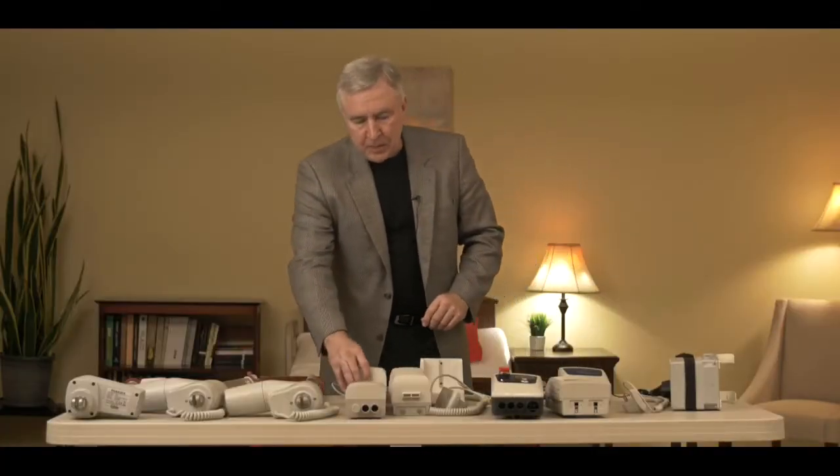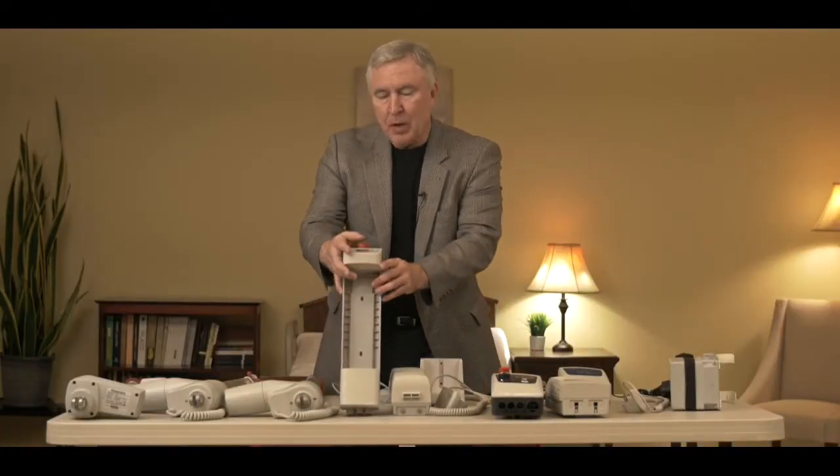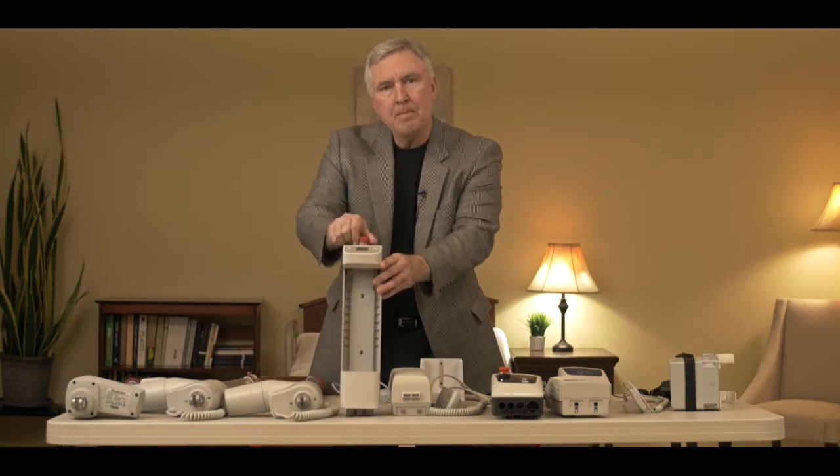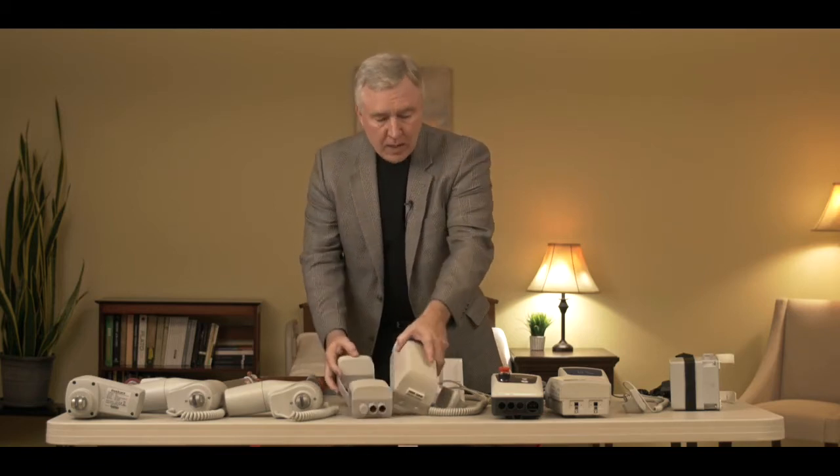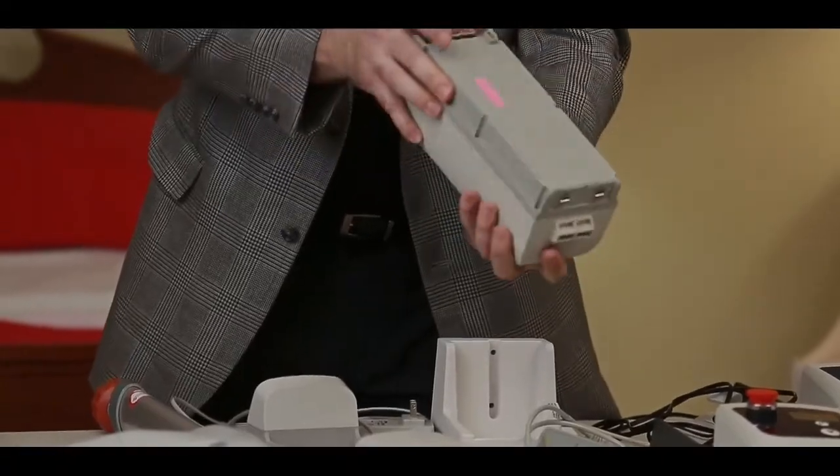Now the third style looks similar to this except the emergency stop button is on the top. The battery removes but the battery, as you can see, looks quite a bit different than style two.